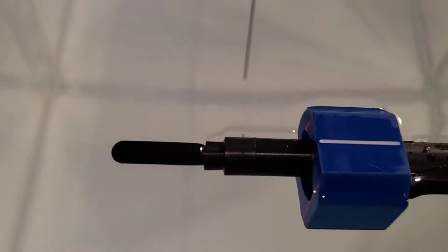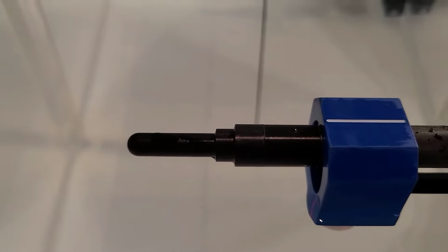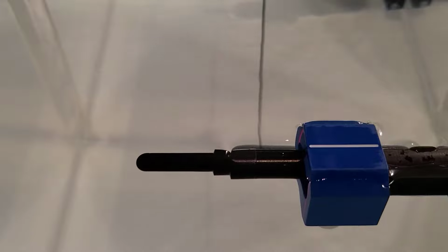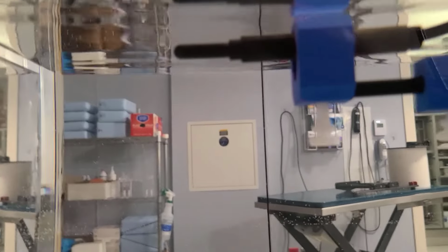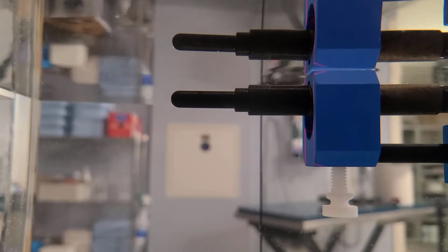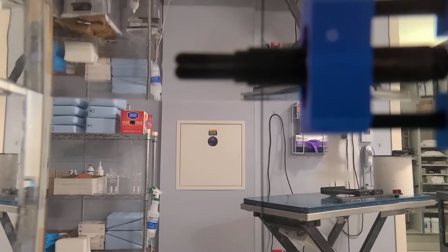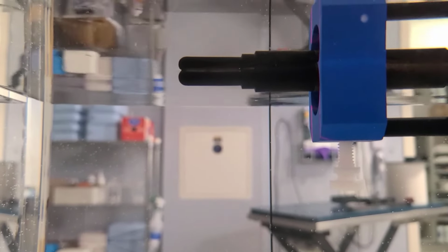Now, let's take a look at a practical example of setting an ion chamber at a water surface. Using the point of measurement, we let the software make the shift for us. We're going to go down below the water surface, and then we're going to go up, and we're going to match the reflections. When the reflections match, that's when we're at the surface.